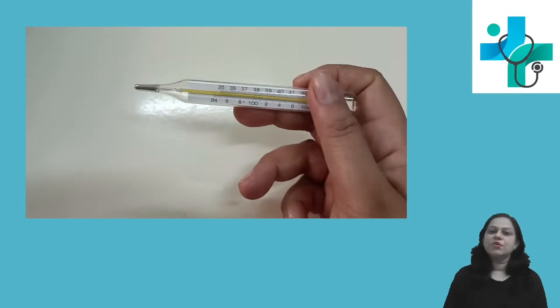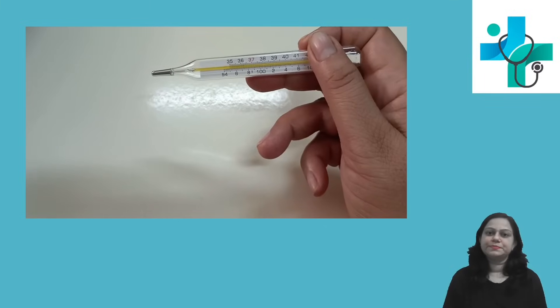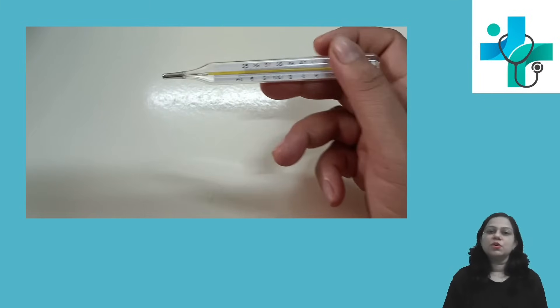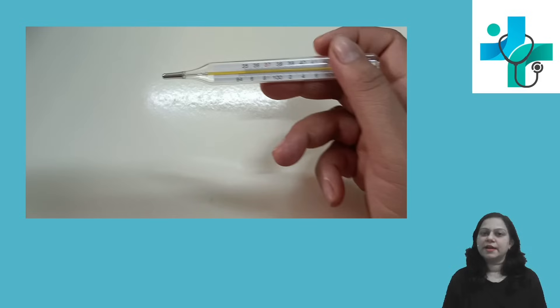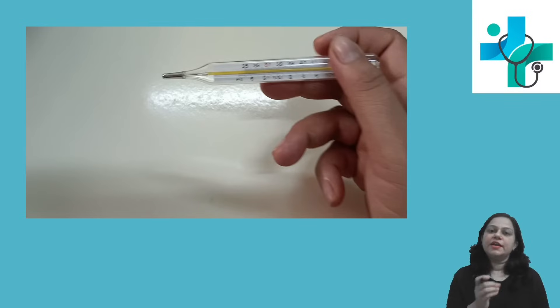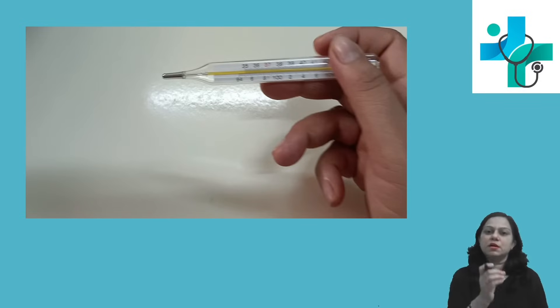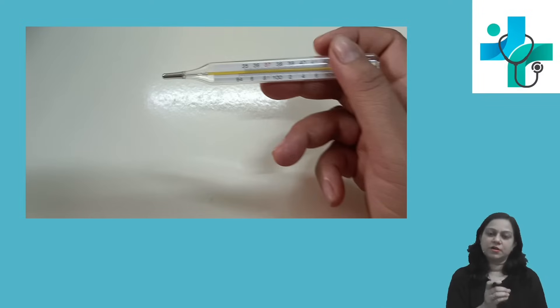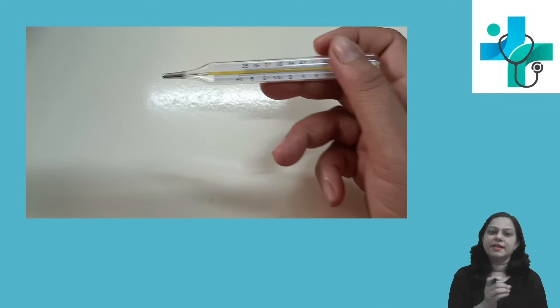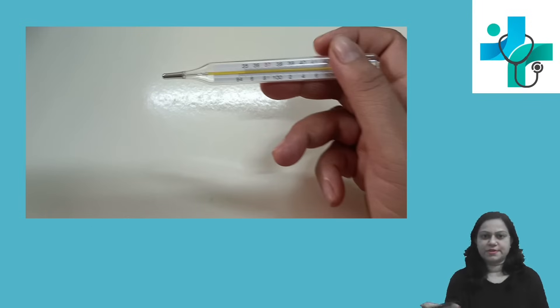This is how you are supposed to hold the thermometer. Always hold the thermometer from the other end where mercury is not there. Never hold the thermometer from the tip where the mercury is. Always hold it on the opposite side.